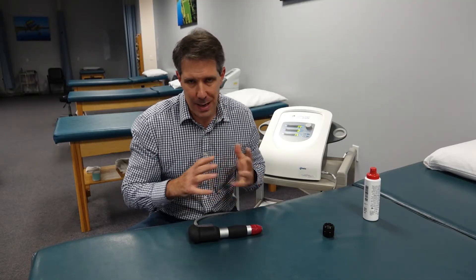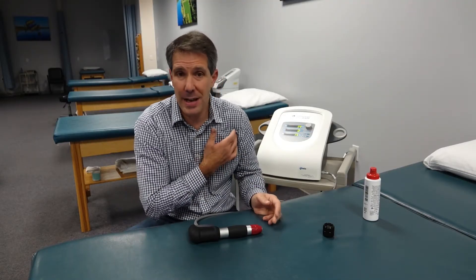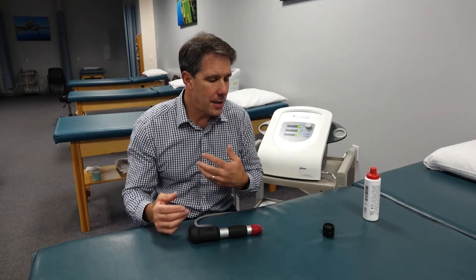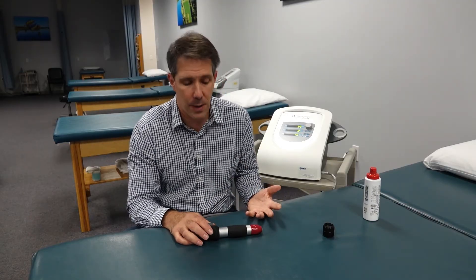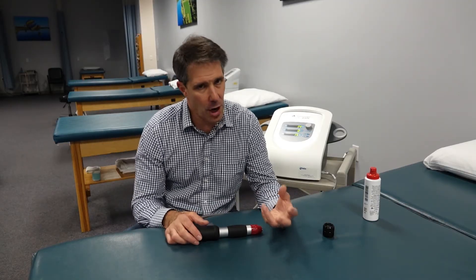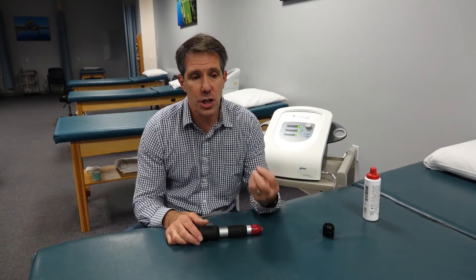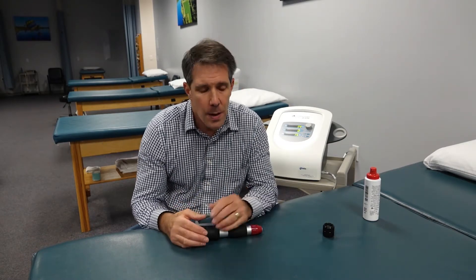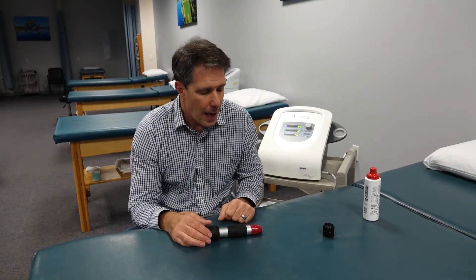We've been using it with some of our patients, just adding it as another piece of the treatment puzzle. We've had amazing results with people who have adhesive capsulitis and chronic lateral hip pain — in some of these patients this is the only thing we've done differently and we've seen pretty significant improvement. It does a great job bringing blood flow to the area, not just to the skin but also to the deeper structures. You can do it before treatment, though I like to finish up my treatment with patients using it.